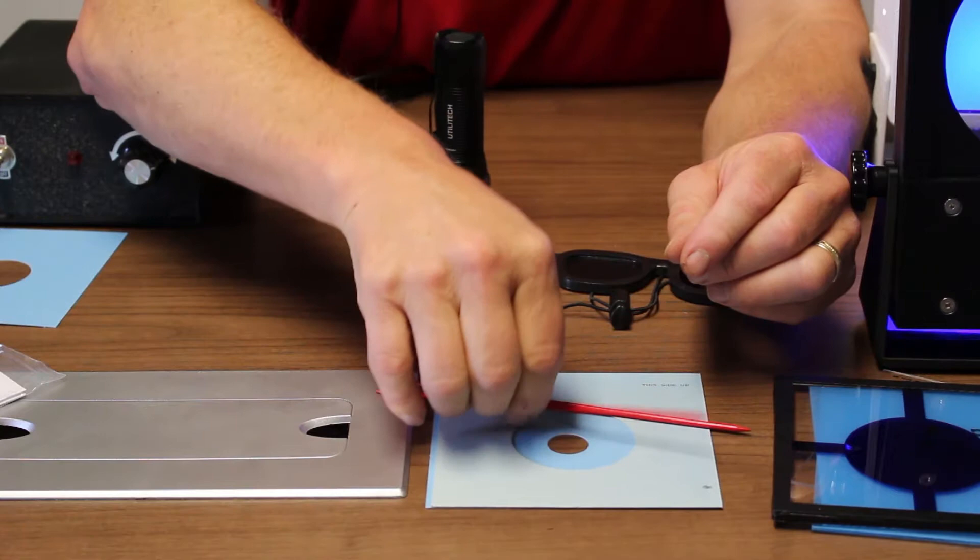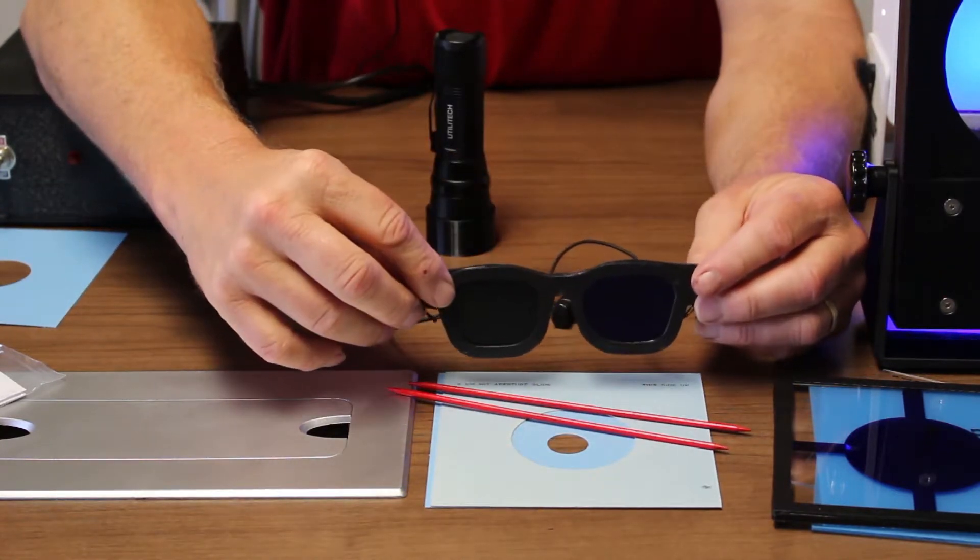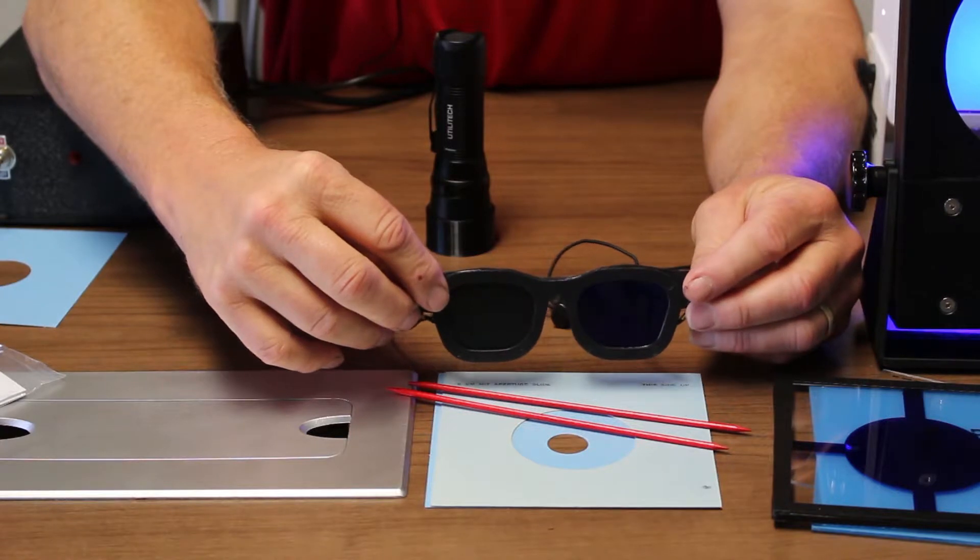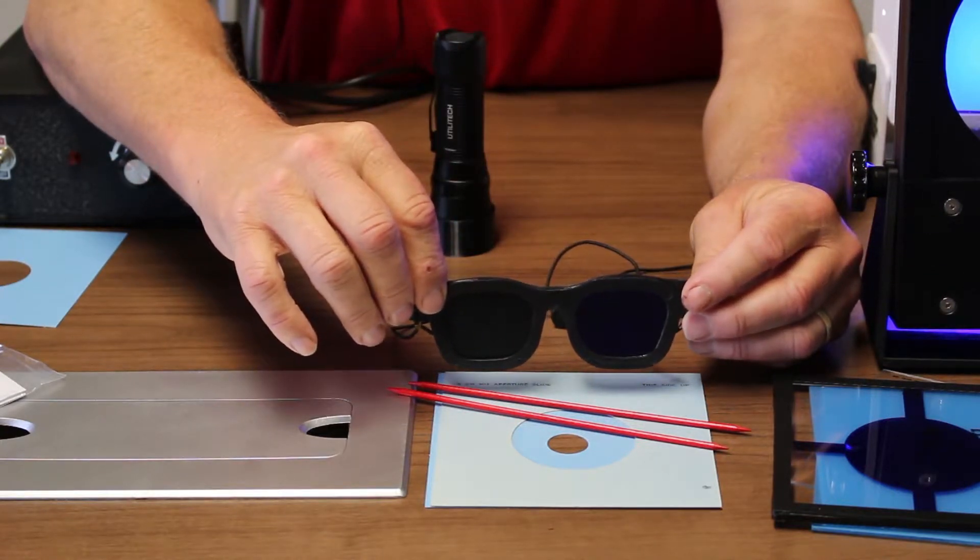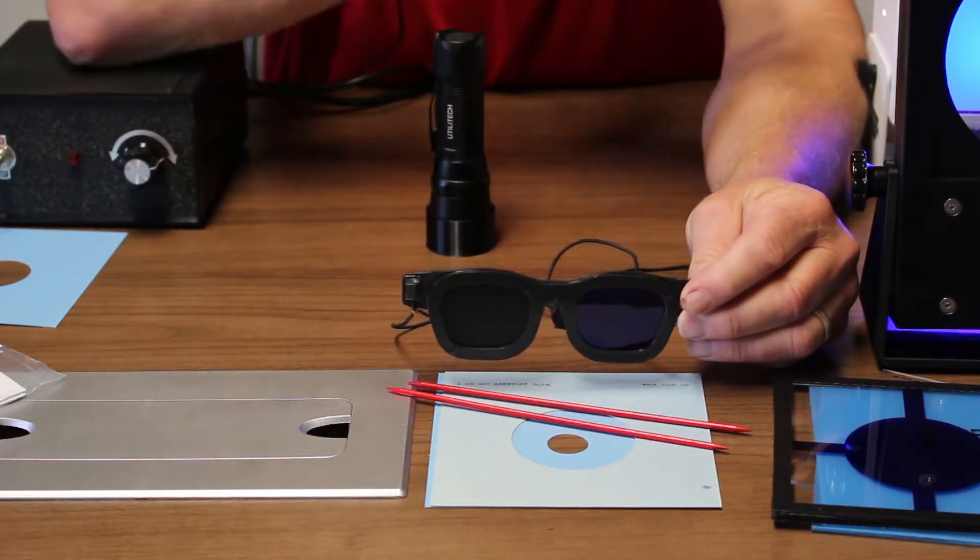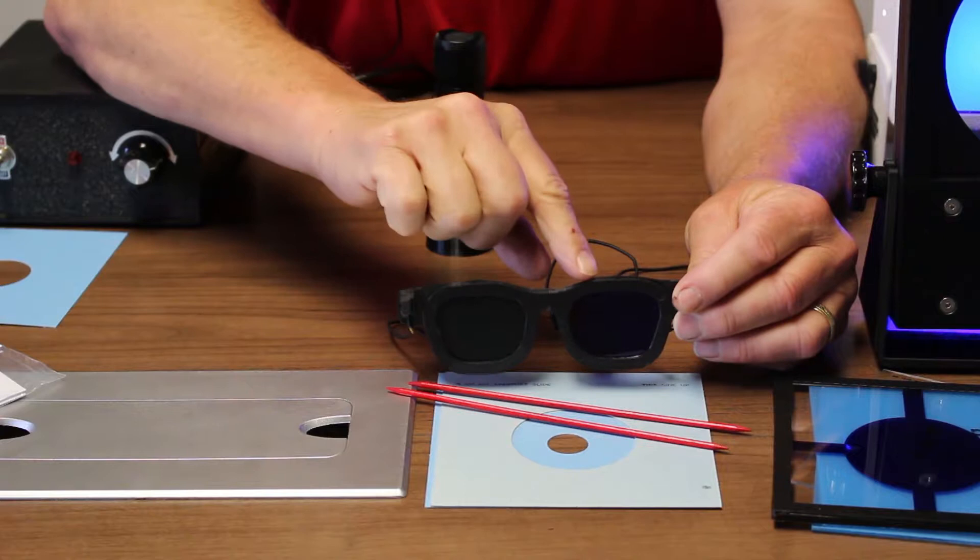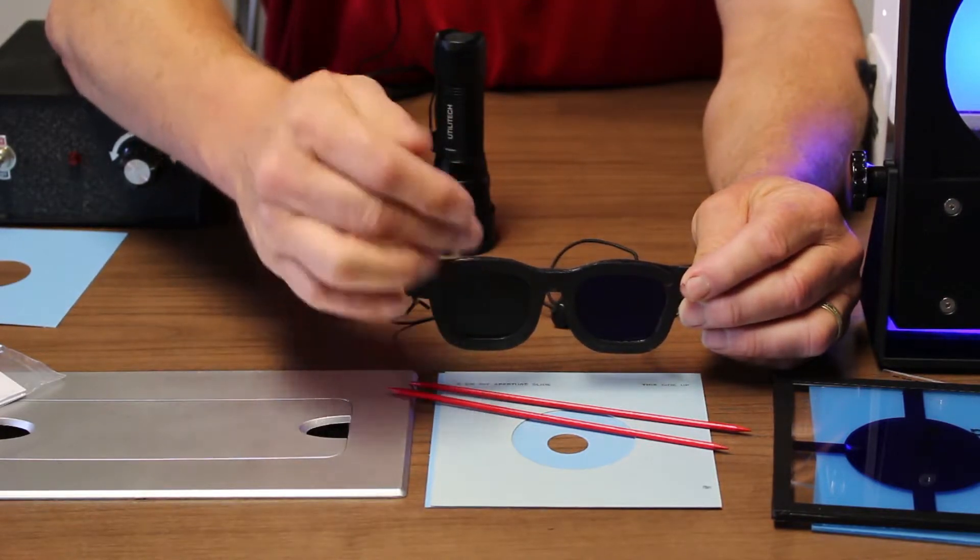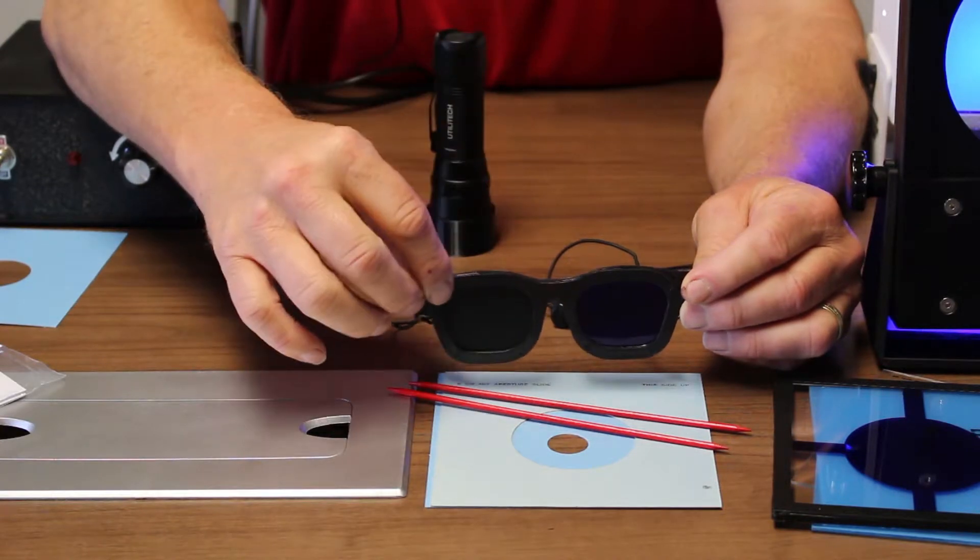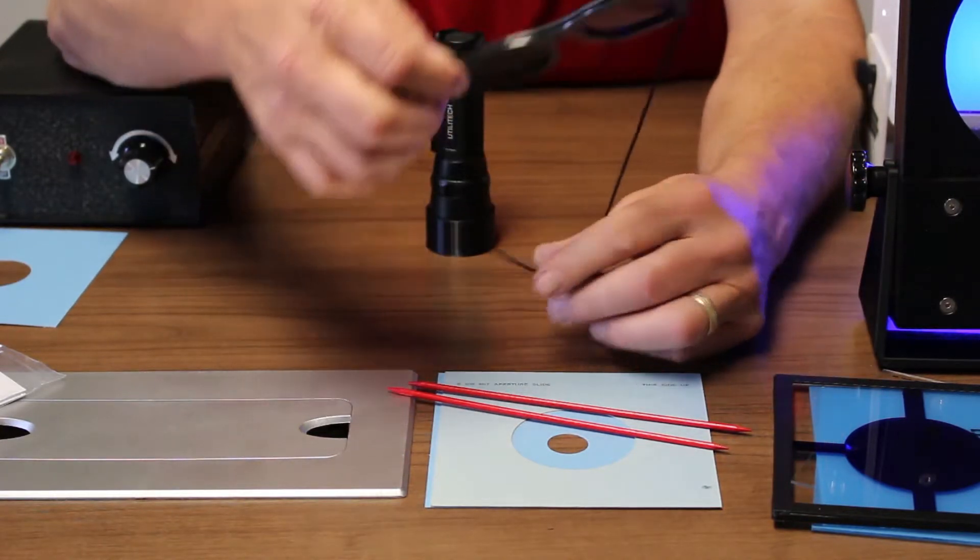Of course, it comes with red pointers and then two other accessories here. The original MIT often needed to double up and use a lot more cobalt blue to get the after image. If you cannot get a good Haidinger brush with the setup I showed you earlier, you can try putting the goggles on. The other nice part about the goggle, of course, is it blocks the good eye and only lets the amblyopic or eccentric fixating eye look. So you can use those.